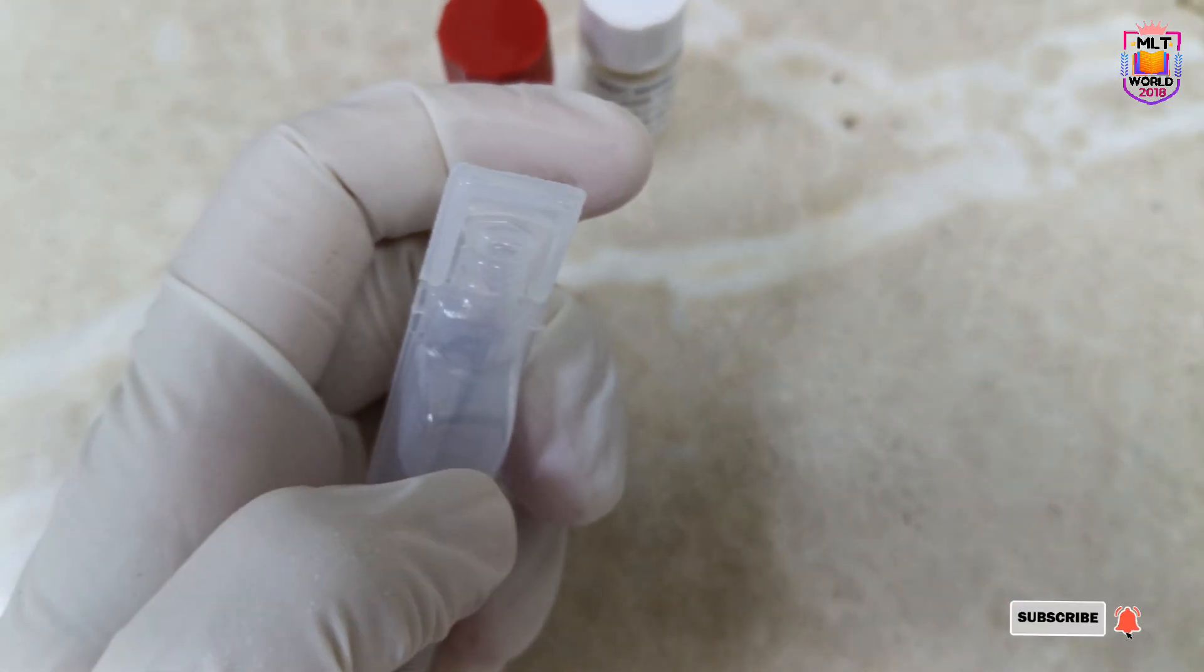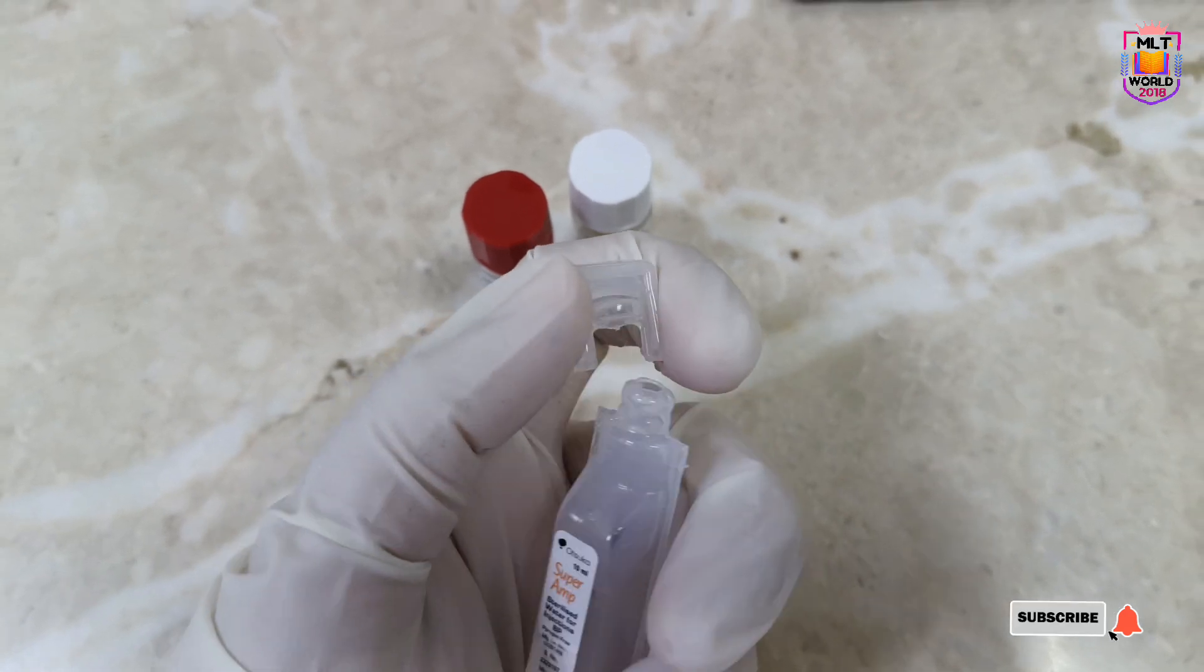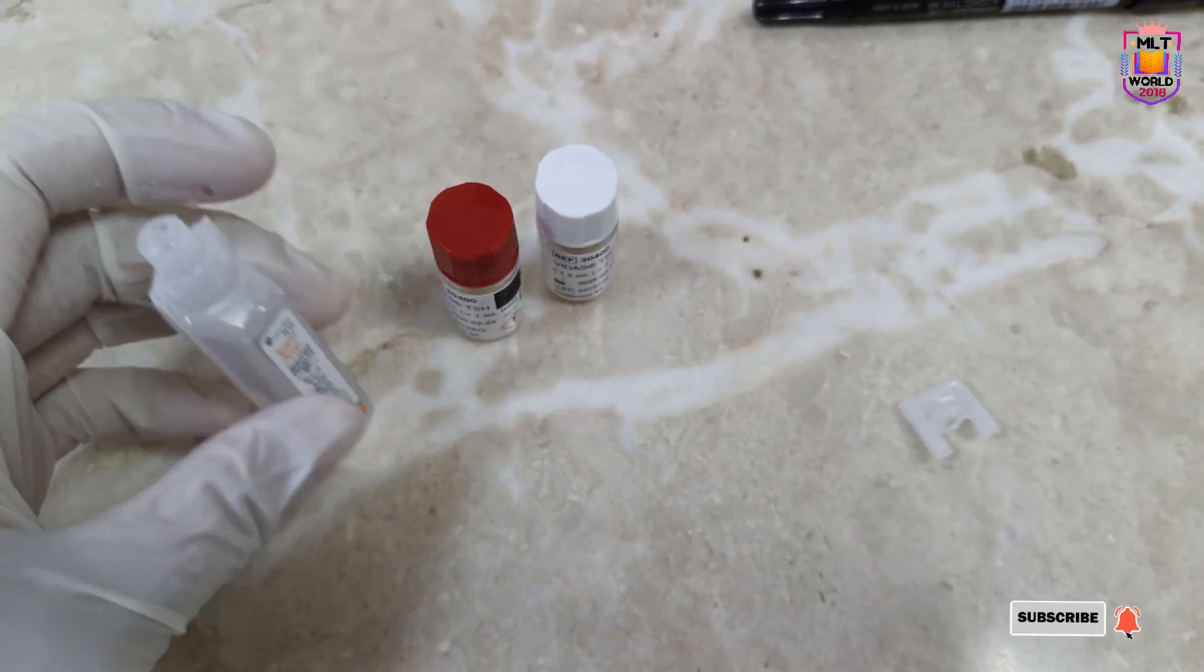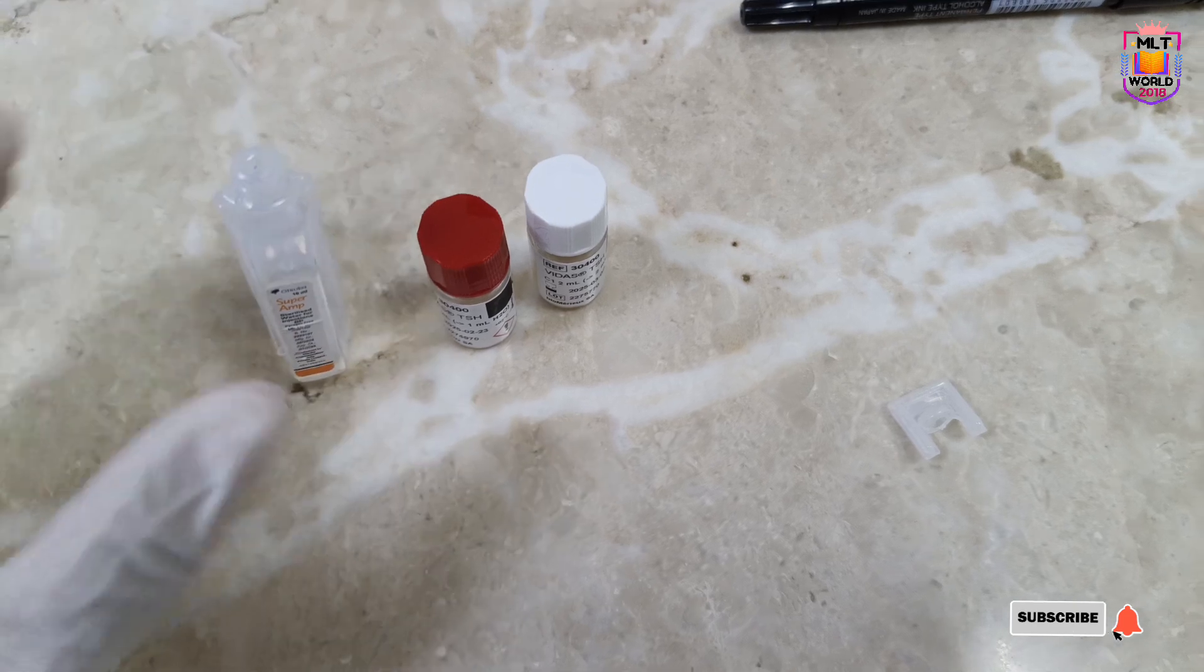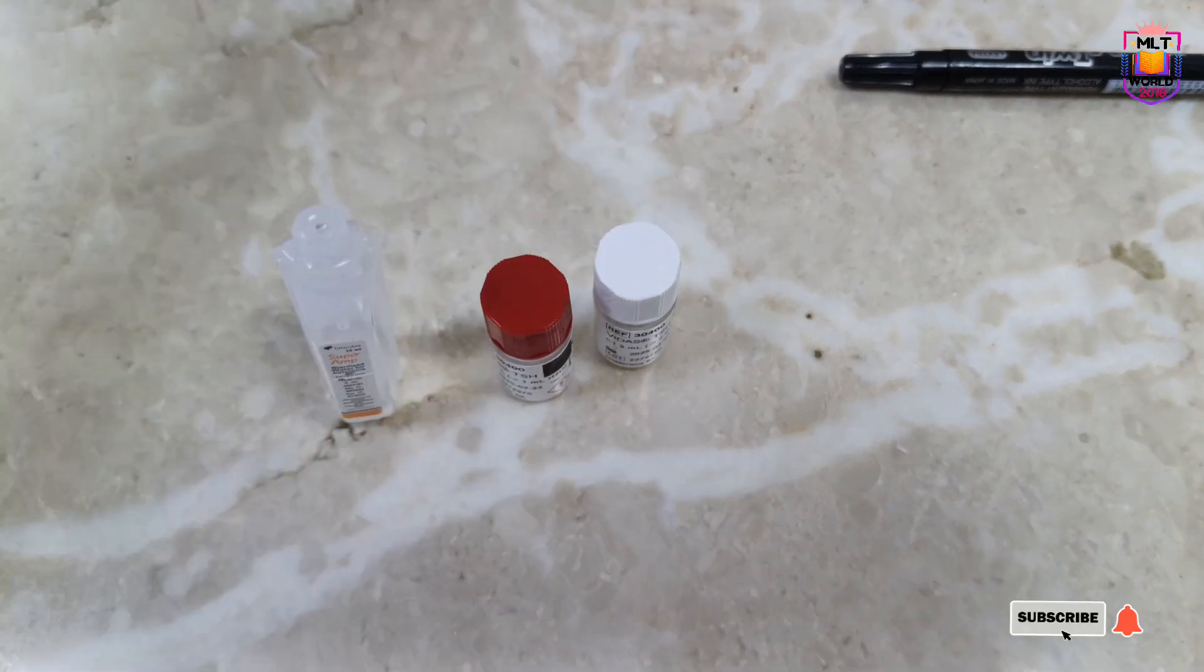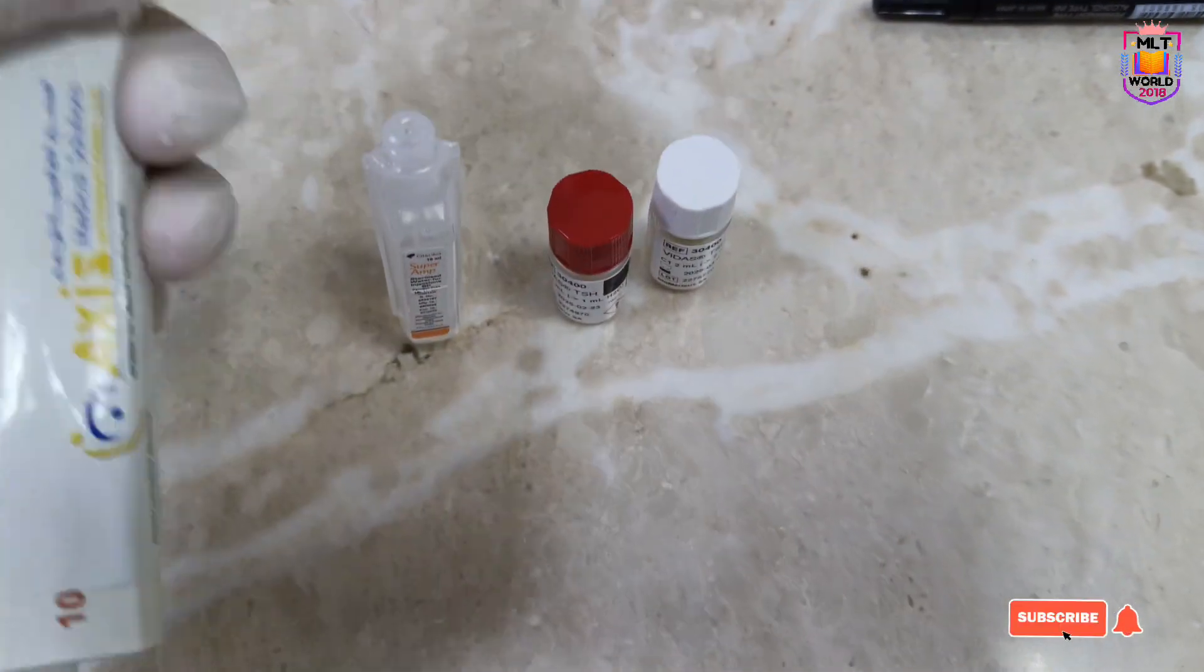What we require is a 1 ml pipette and blue tip. Then we will dispense the injection water into centrifuge tubes and check in each vial how much water needs to be added.